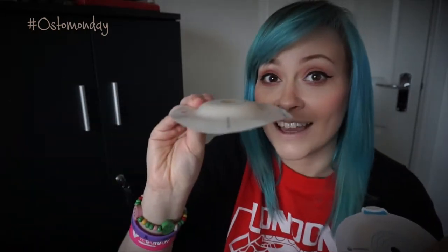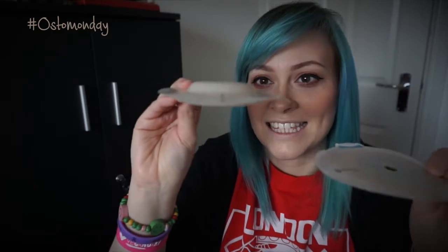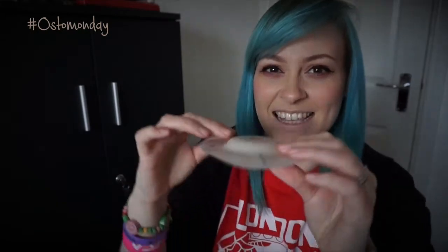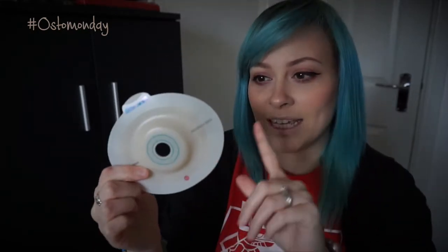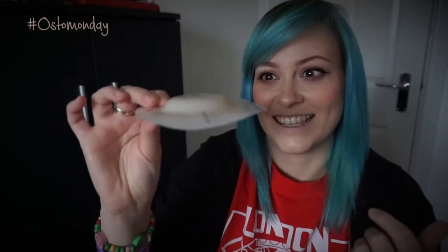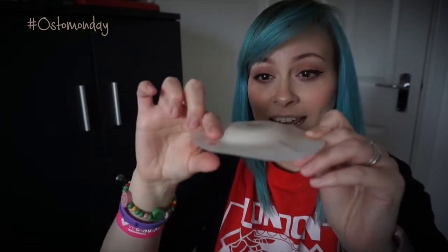Whereas this is a convex — you can see the difference. It's got this dome in the middle. This is a deep convex just because it's easier to show you the difference. With the Coloplast one you can get soft, light, or deep convex versions, so you can get lots of different depths. Just for demonstration this is the easiest to show you — it's got the flat bit around the outside but then it goes really big with this dome in the middle.